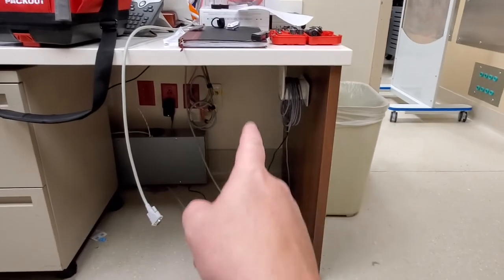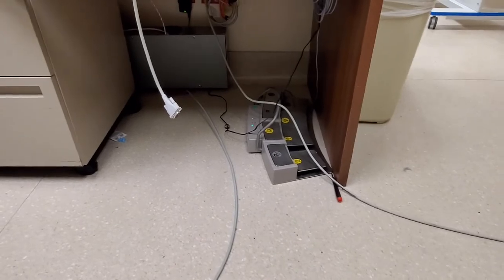All I've got to do is run the cable up above the desk, back to the GE monitor, and this job is done. Running cable is something that we biomeds do — just be sure to take your time and make sure you're not damaging your cables, because why even run the cable if you're going to damage it? This time I didn't use cable lube, but sometimes you need to. I figured the conduit was going to be large enough diameter. It is kind of a silicone-type sticky cable though, and that could have been a pain. It would have been easier if I'd used some cable lube or some rubbing alcohol — I've used rubbing alcohol before too, and it naturally evaporates. If you're doing a short run, rubbing alcohol works really well, or maybe some hand sanitizer because it stays liquid a little bit longer than regular rubbing alcohol.